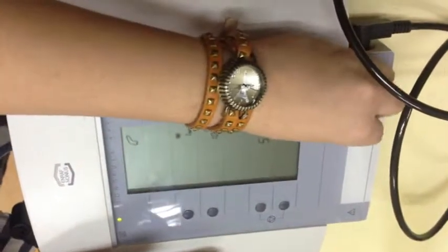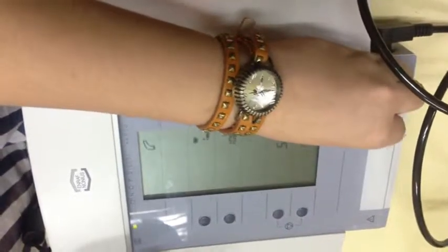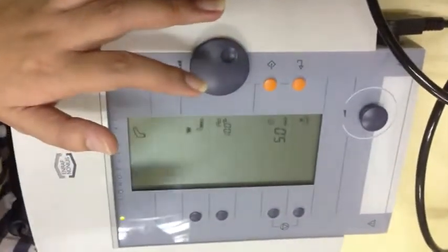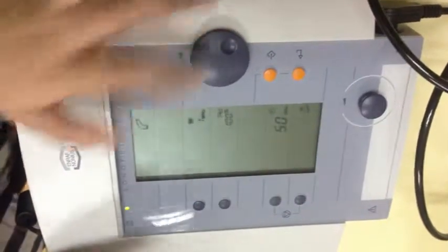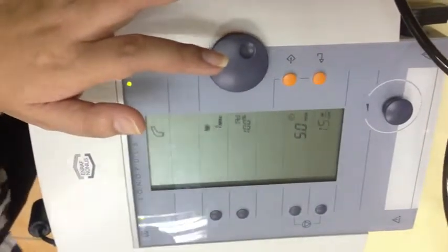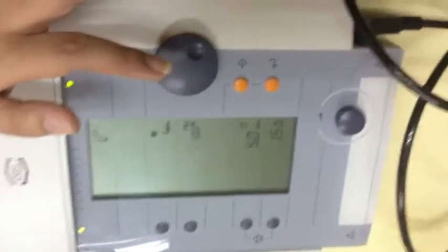Even with the other machines. So, range lang po yung 0.5 to 1.5. Yes, okay, that's the acceptable range, okay? Pero ang most commonly used talaga in terms of clinical practice, 1.5 watts per cm squared, okay? Regardless of the surface area, kung gaano man kalaki yung area na ititreat mo. So, ang mag-matter lang would be yung chronicity ng condition.